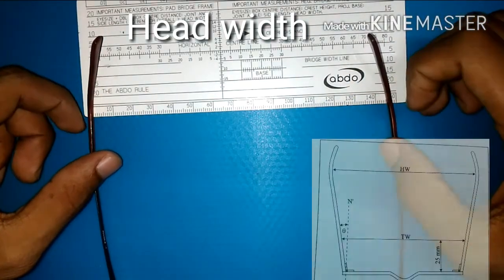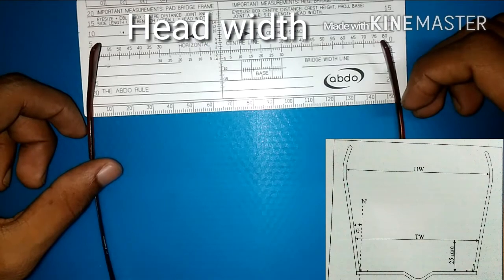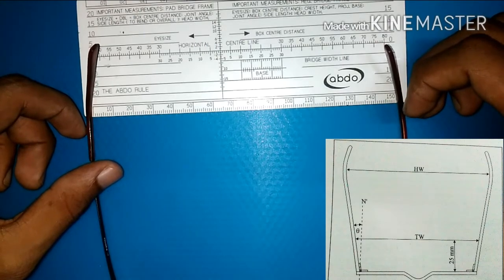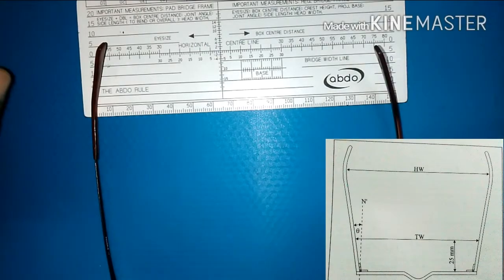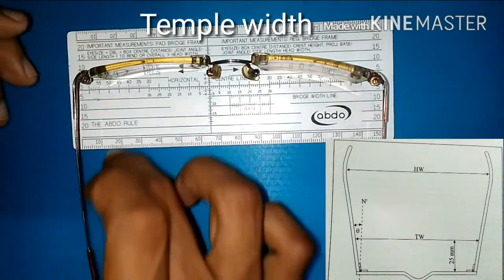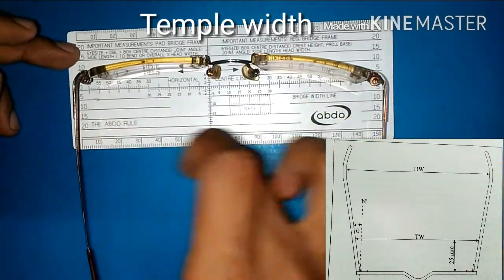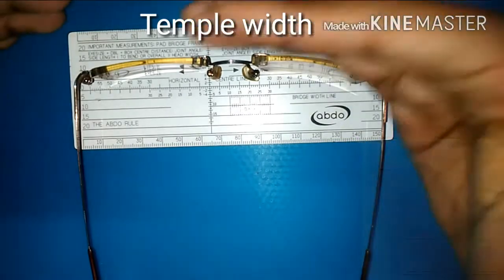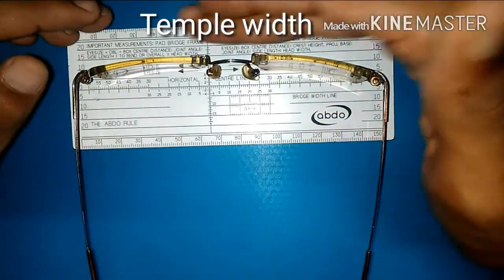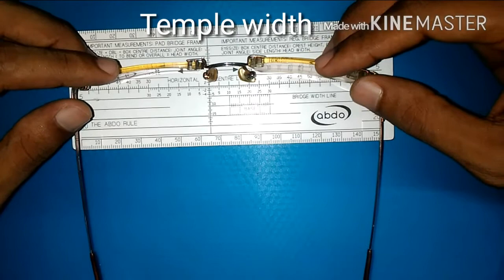The distance between the temples at the ear point where it bends — for this frame it's along 150mm.